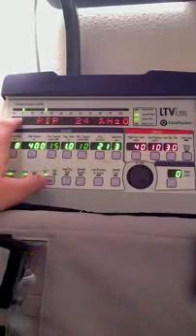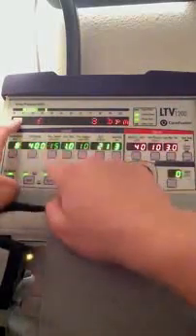So this is my PIP. My peak inspiratory pressure is 24. This is my mean airway pressure, which is 4. This is my PEEP, which says I have 1 of PEEP here. This is my rate, and you can see F is for frequency, which is rate. That's 8 breaths a minute. Of course, that's what I have set.